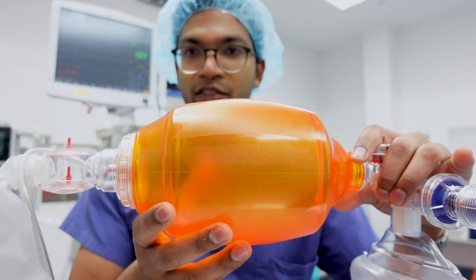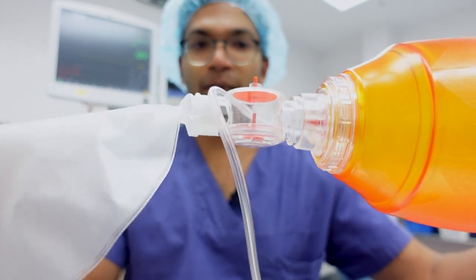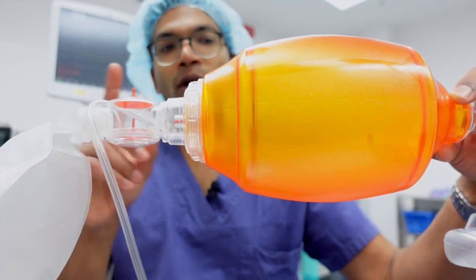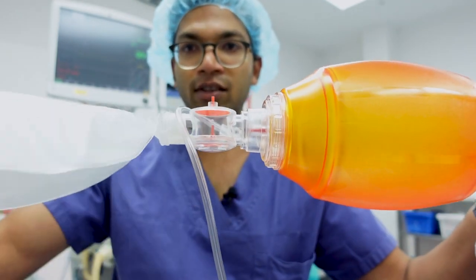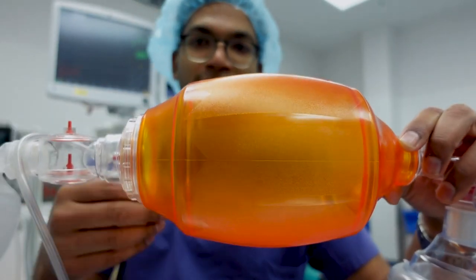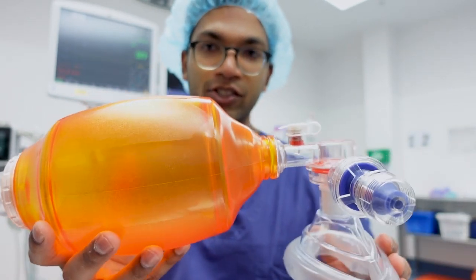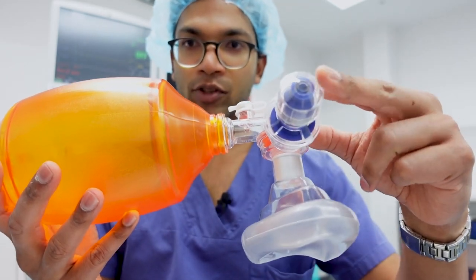As mentioned, it leads into this two-liter reservoir which can hold two liters of oxygen, and you've got this reservoir bag here for any excess oxygen. This will fill up slowly during your ventilation of the patient, and once you compress and release, this reservoir provides the oxygen that gets entrained back in to fill the bag almost instantly. Therefore, if you have the right circuit device and a really good seal, you can deliver up to 100% oxygen — the manufacturer states 98% with a proper closed circuit using the expiratory valve.